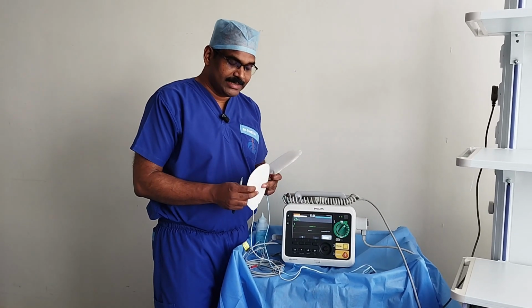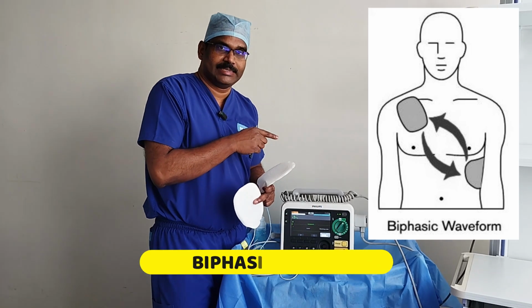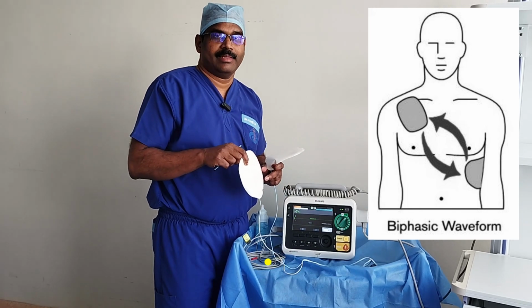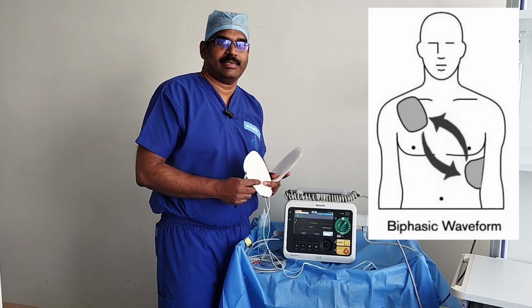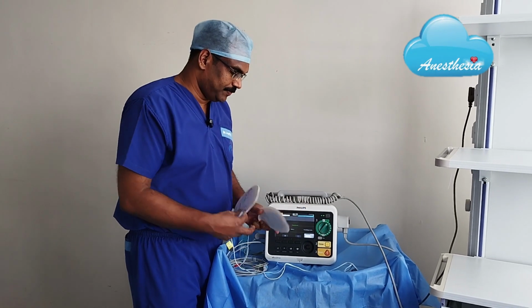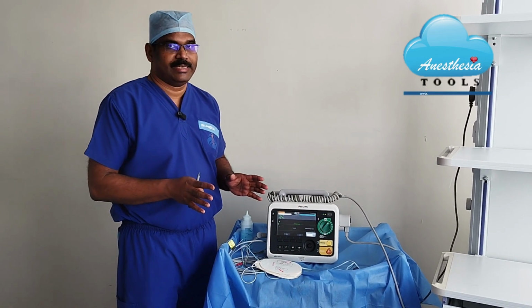That means initially the current passes from one pad to the other, just like in monophasic, and then it changes direction and comes back to the original pad. The idea is to reduce the energy dose required so that the effectiveness will not be compromised by reducing the joules selected. Most of the newer defibrillators are biphasic.